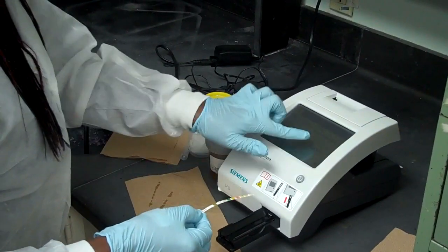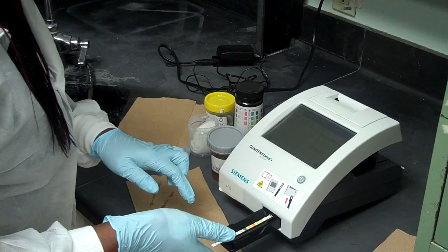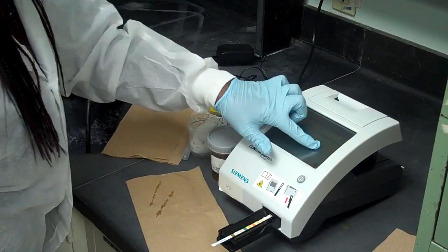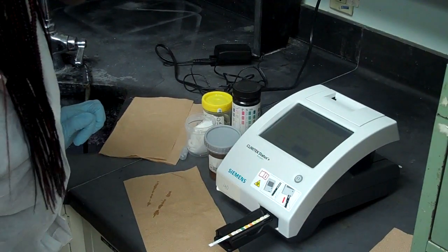And you slowly, you press the start button. And place that on the table. That takes eight seconds. And place that straight away.